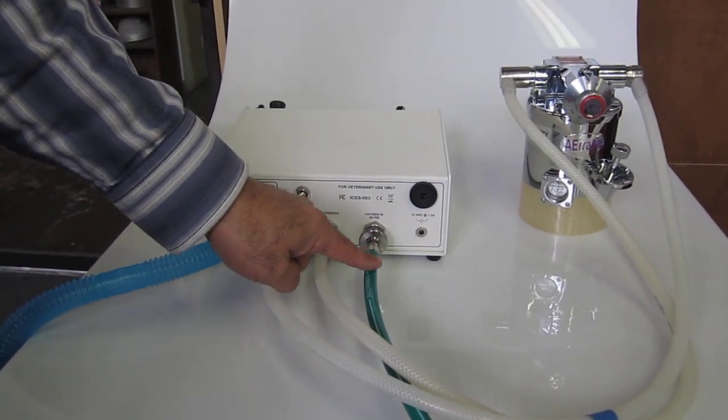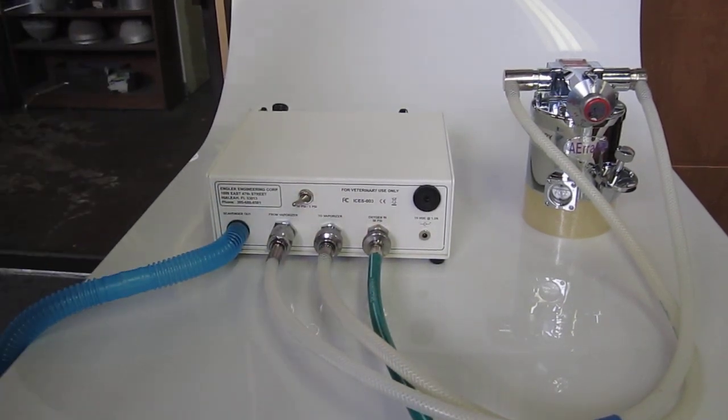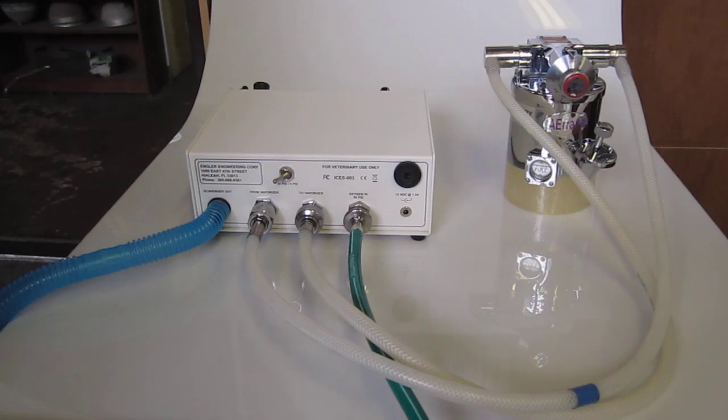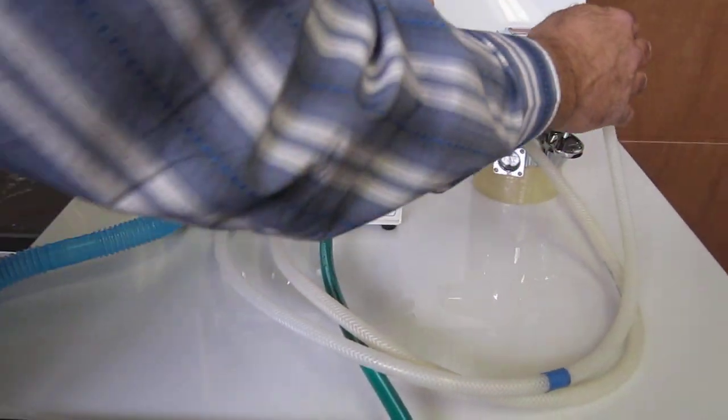Then we have the oxygen in, which goes out to the oxygen tank or piped-in oxygen. We have it right now hooked up to a vaporizer.